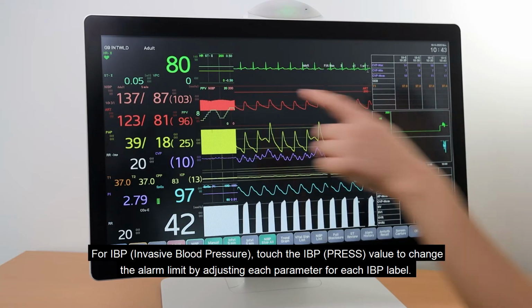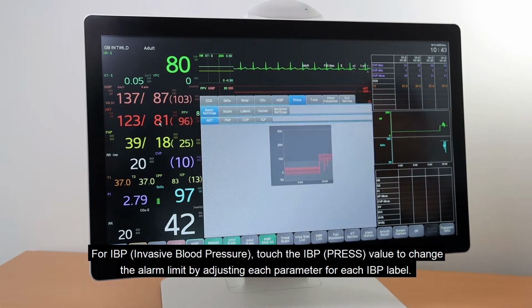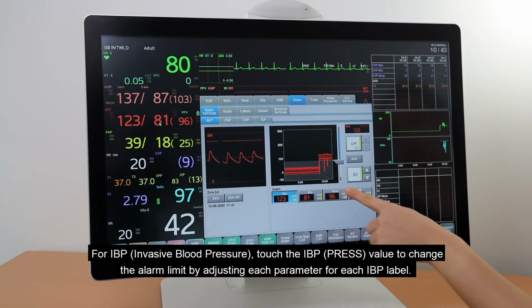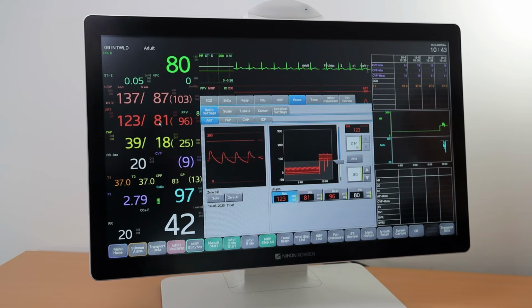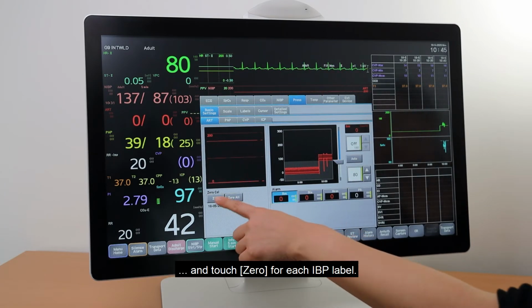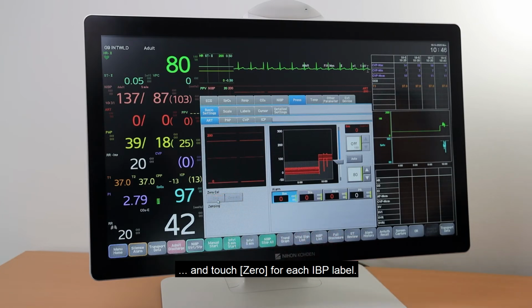For invasive blood pressure, touch the IBP value to change the alarm limit by adjusting each parameter for each IBP label. For zero calibration, expose the blood pressure line to the air and touch 0 for each IBP label.